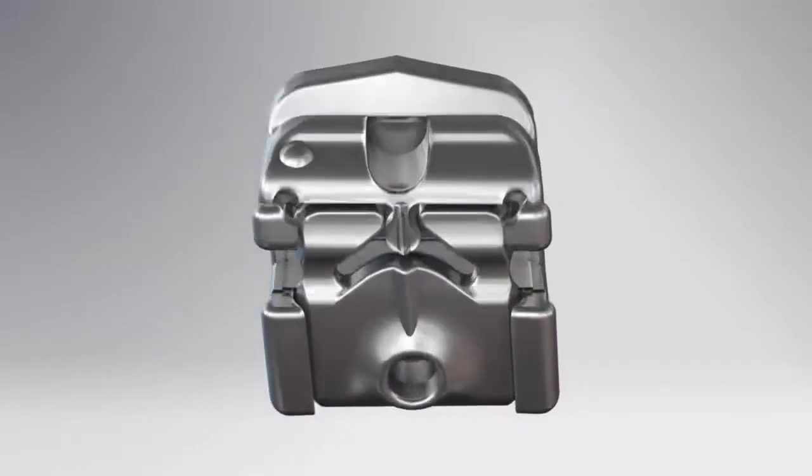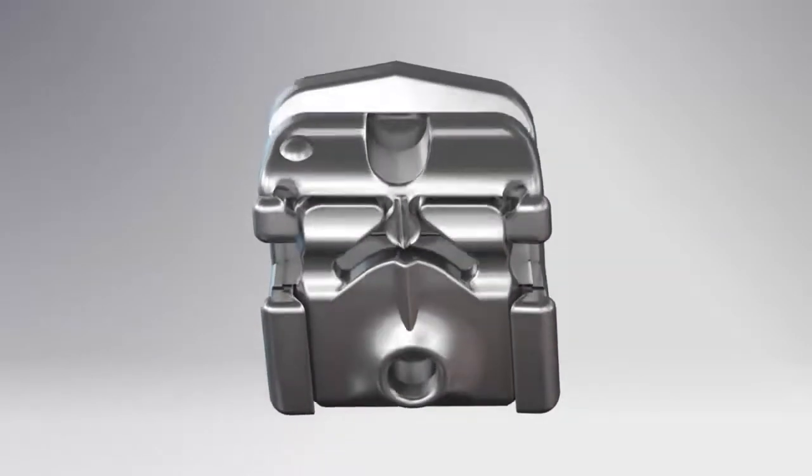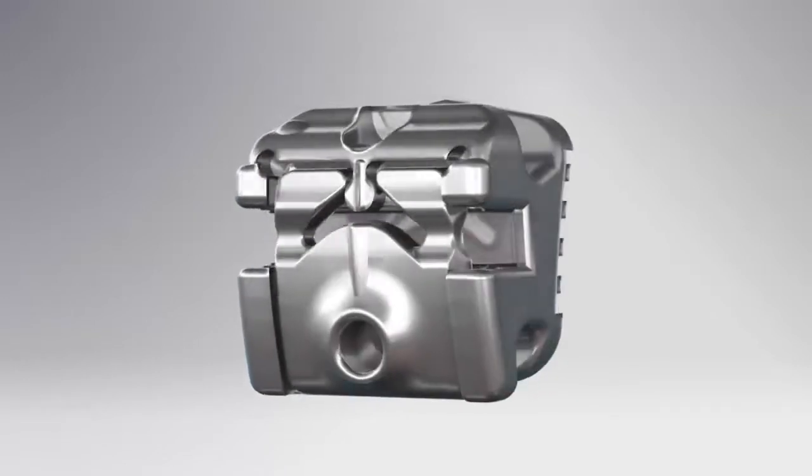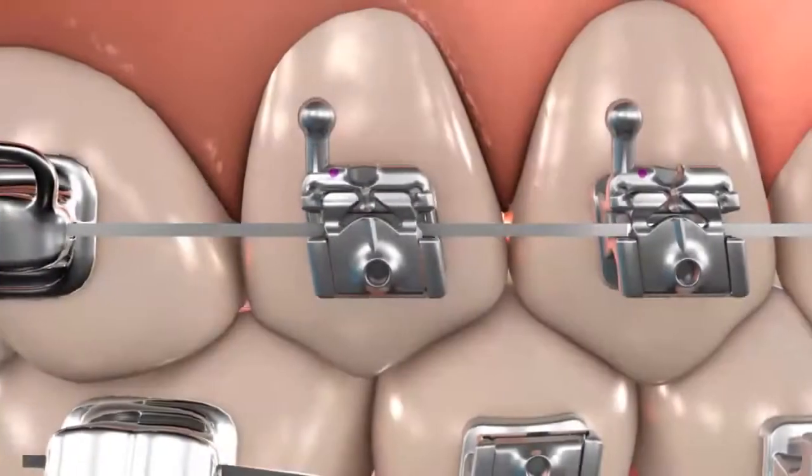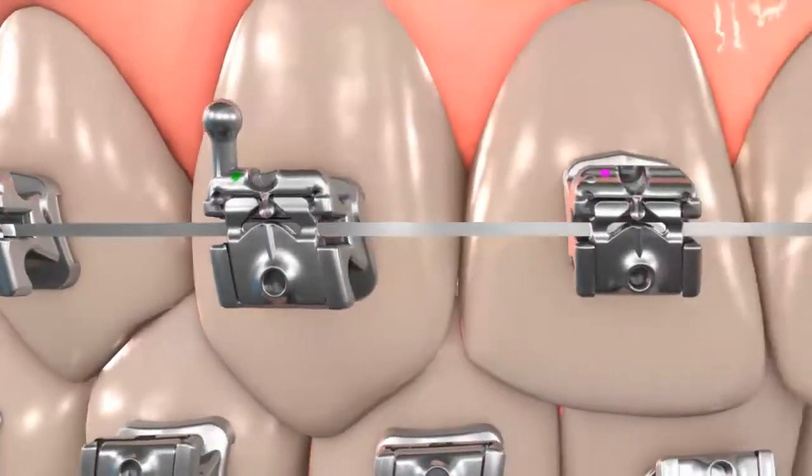The bracket design allows friction on-demand and patient color preference. The Carrier SLX bracket offers built-in, comfortable, and secure hook options on threes, fours, and fives.